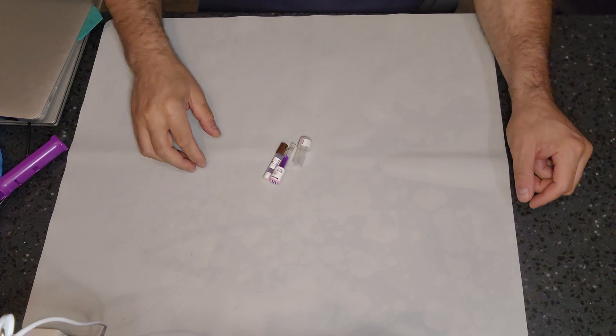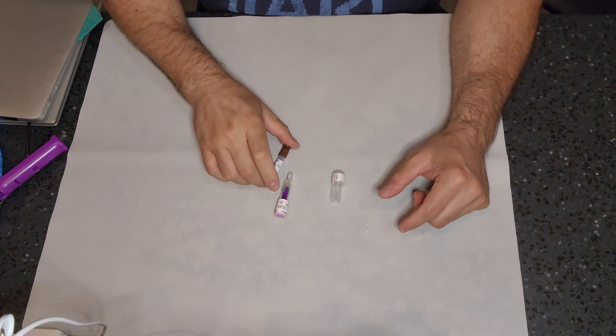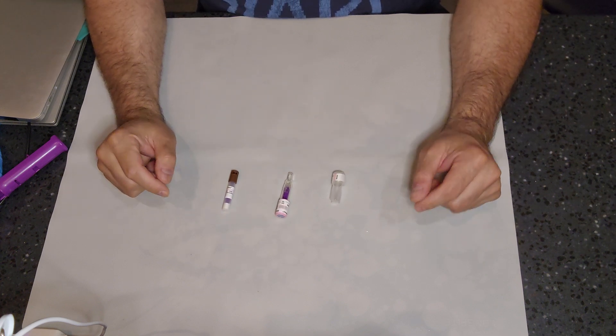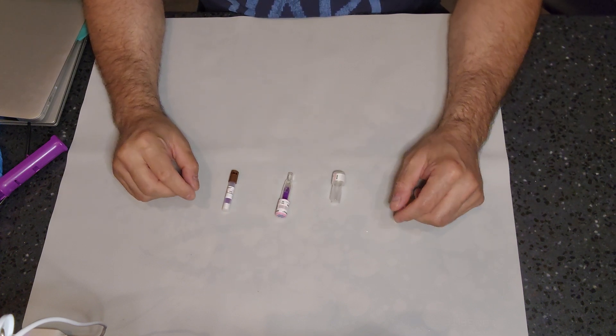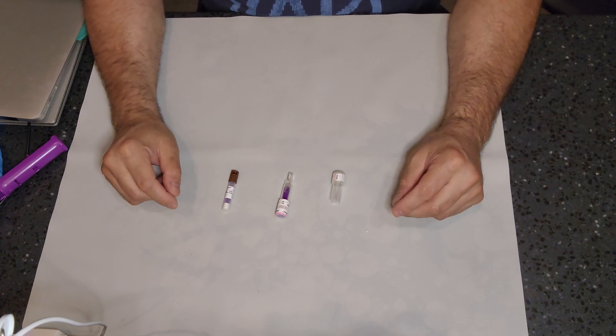What's going on guys? Welcome back to WDYDCSP. What do you do as a central sterile processor? I'm going back to basics and we're talking activation of your biological indicators.